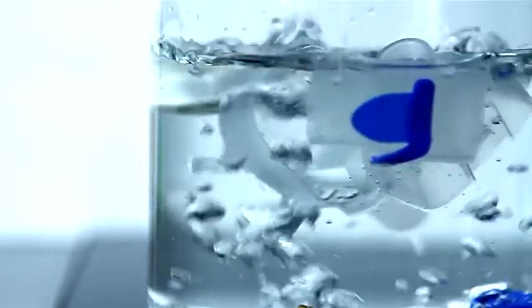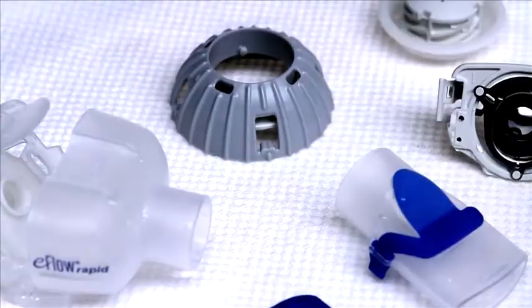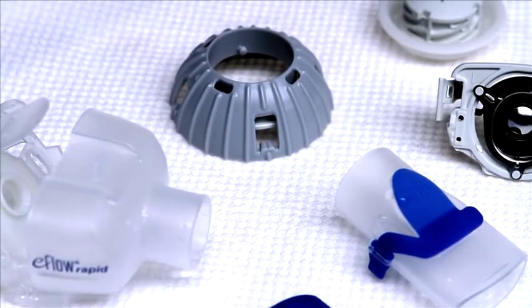To dry the parts, place them on a clean, absorbent surface. Allow the parts to dry completely and keep them in a dry, dust-free place.